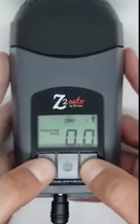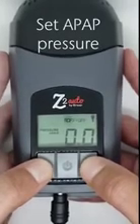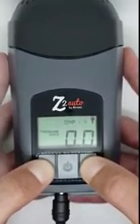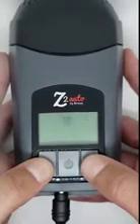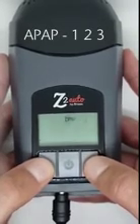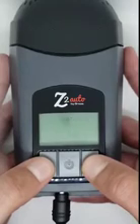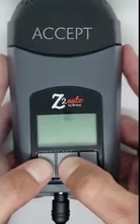We are now going to change back to APAP mode and set the pressures. To do this, press and hold the up and down arrows until CPAP dash and the current Z-breathe number appears. Using the up or down arrow, bring the unit to APAP dash and the Z-breathe number you need. Once there, press and hold the power button until the unit says accept. It will then return you to the 0.0 screen.